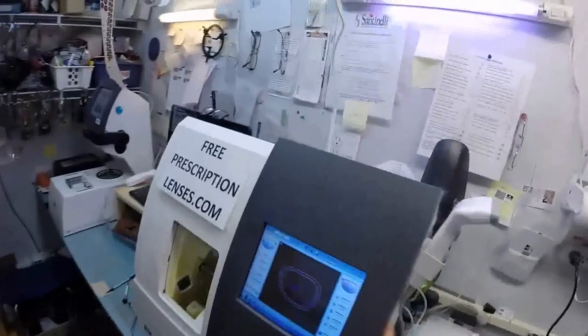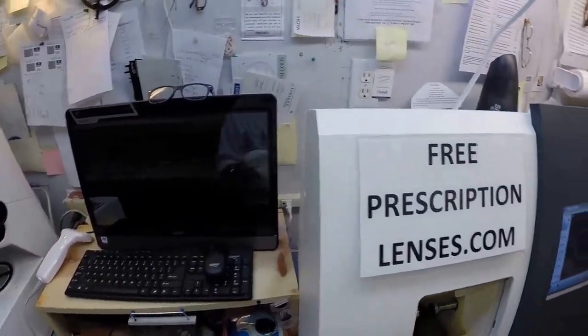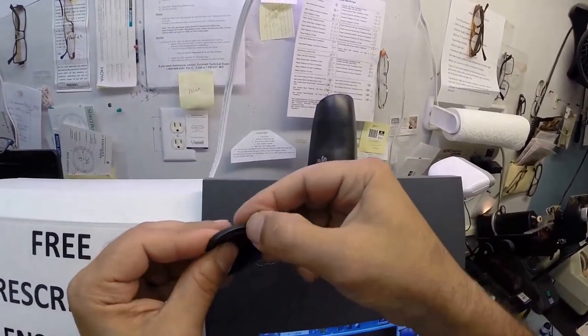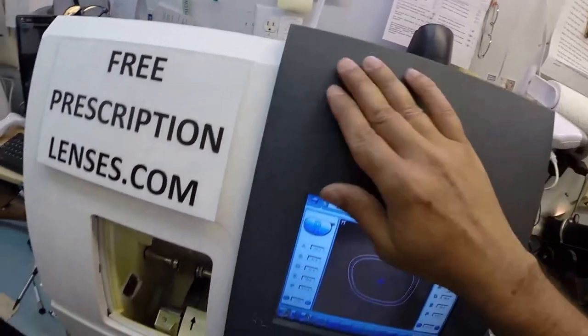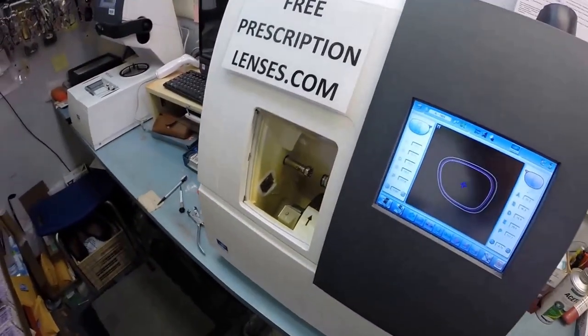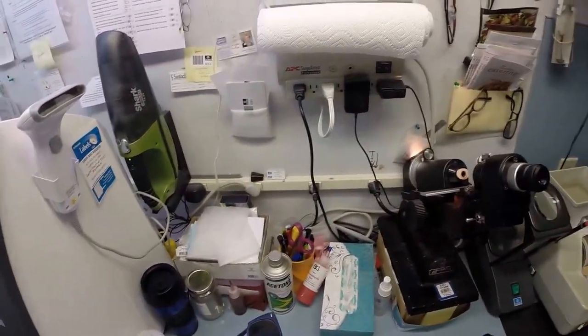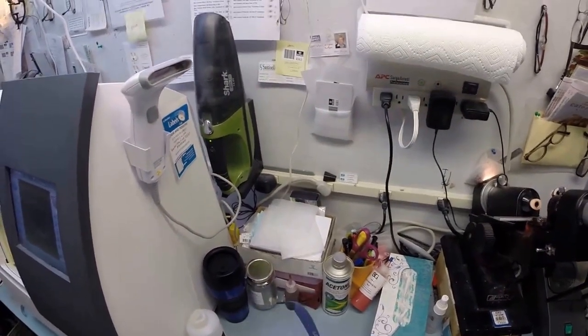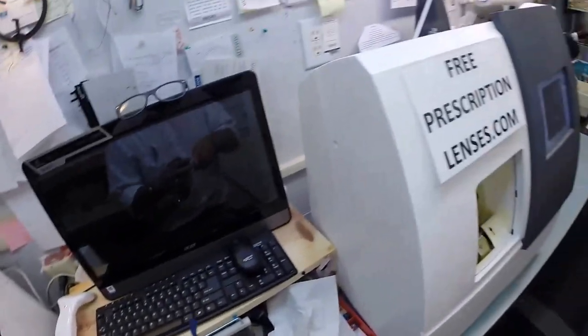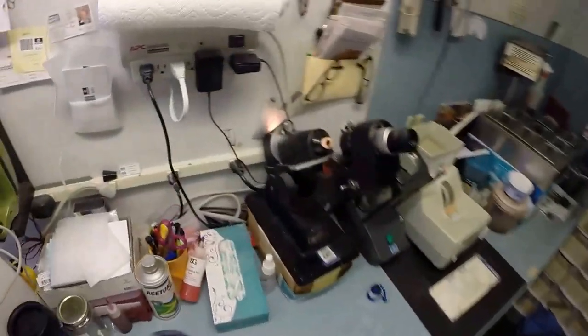So, your left lens is done. Let's take it out. Let's dry everything off. Now, it is one step stronger. I may have to take it down a little more. We'll see. Look at that. Big chunks of that. Even sticking to the machine. That's a great thing about working here and not a restaurant. I can just drop stuff on the floor. There's no sanitation grade here. So, we're going to take the left lens, tuck it into the outside corner, push down the nose. It snaps in perfectly. Let's go ahead and... Yeah, the right lens always takes a little longer. Once you get the size down, now just flip it over and cut the left.